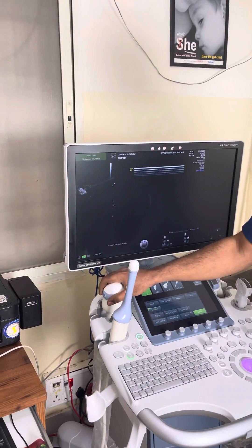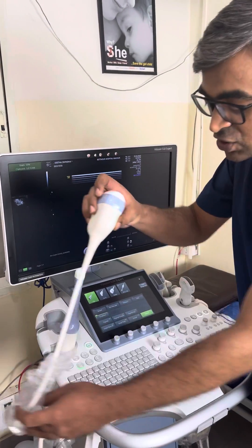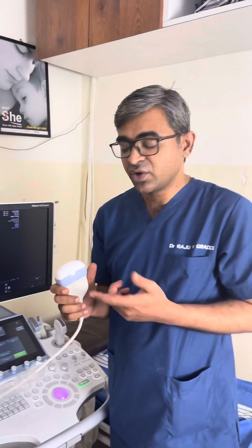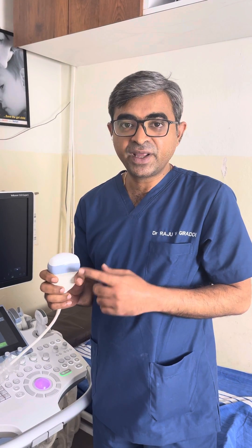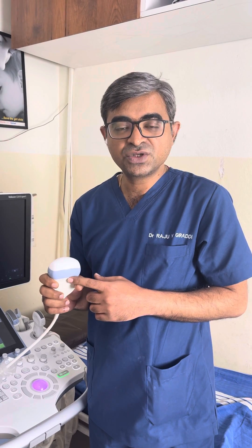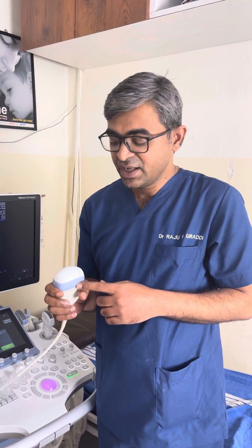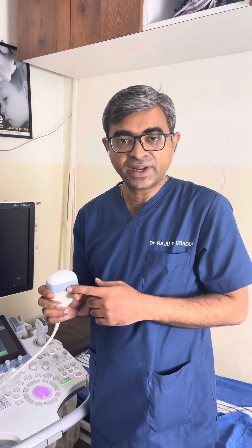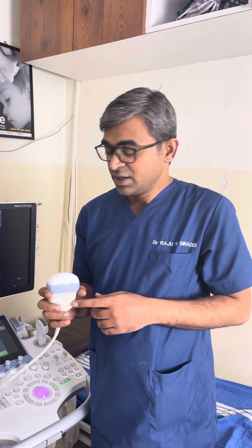We also have special probes called volume probes. These are also convex probes but higher frequency, and we call them volume probes because they create multiple 2D echoes from which we can generate 3D imaging. These probes range between eight to ten megahertz, around nine megahertz.